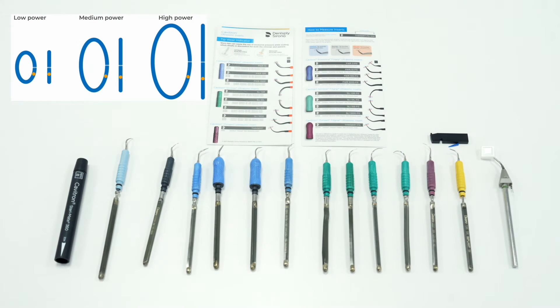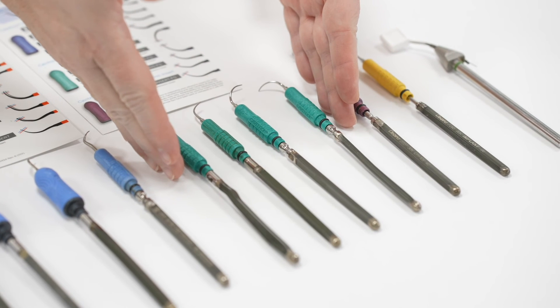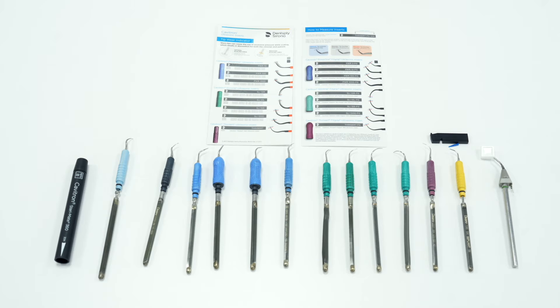It is all about tip circumference — the higher the power, the higher the circumference of the tip, and the lower the power the lower the circumference. If you are using a green insert in a tight perio pocket you want the Cavitron set on low power. However, if you are trying to debride heavy plaque deposits you want to use the blue insert on medium to high power.